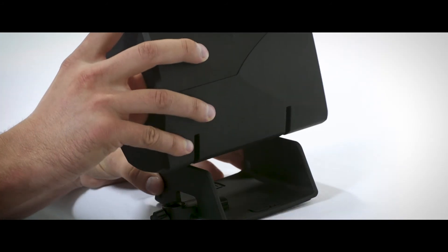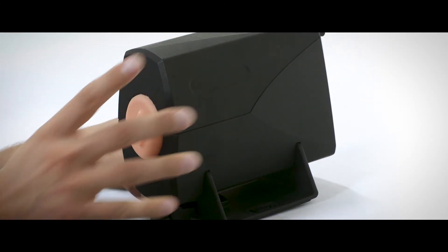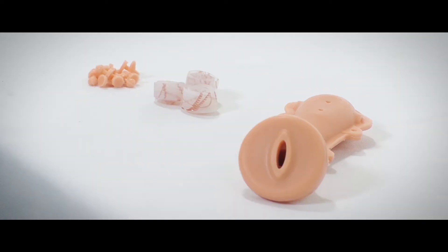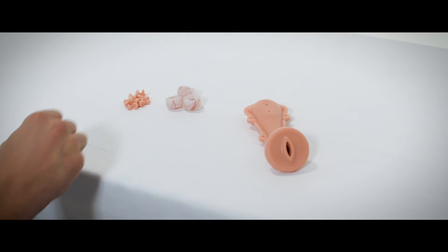The dry lab uterus has been designed to allow affordable high volume hysteroscopy skills training. The uterus itself can be used multiple times by placing single-use pathologies as required.